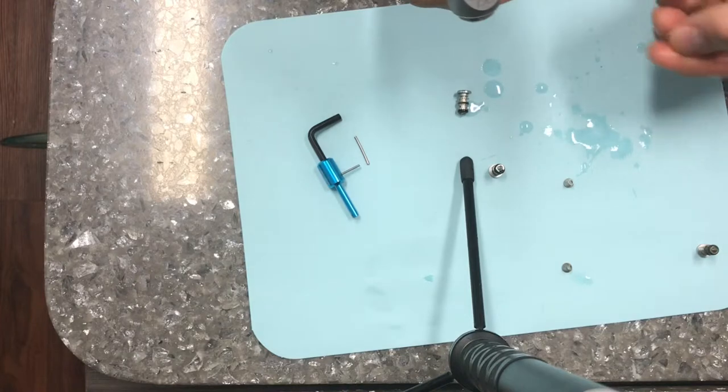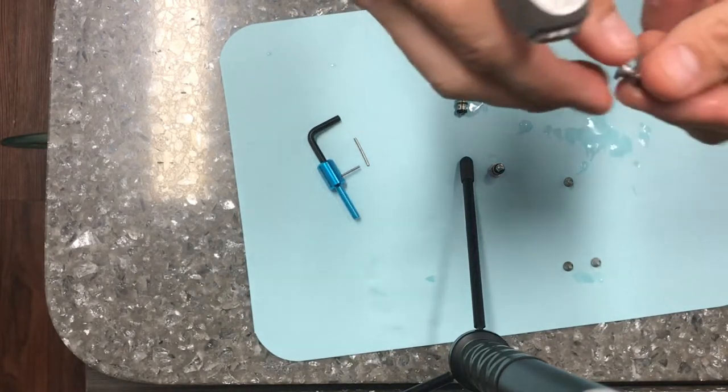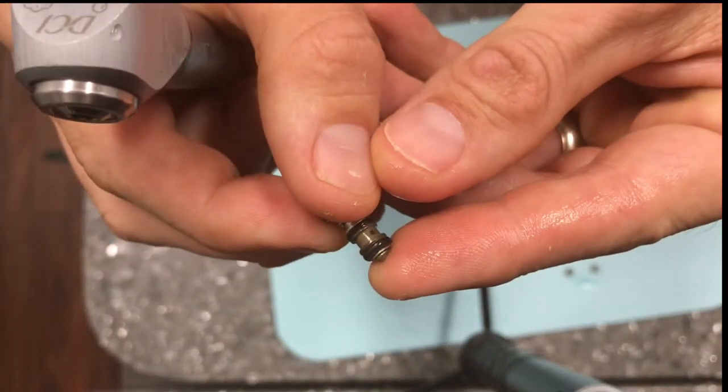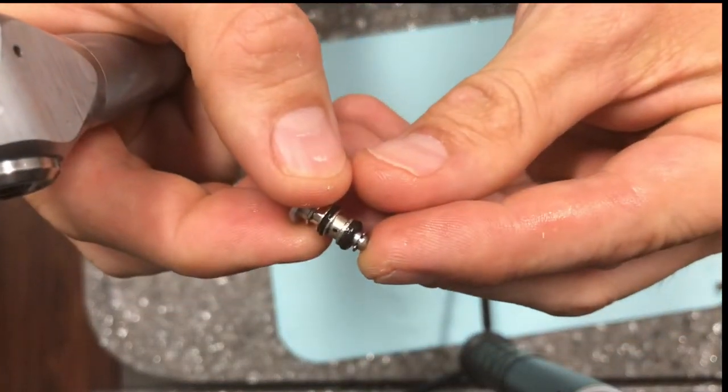Not shown in this video is cleaning the inside of the ports with a 6 inch cotton tip applicator and some rubbing alcohol. Here you'll notice the old water button is discolored. This new button has no discoloration on it.